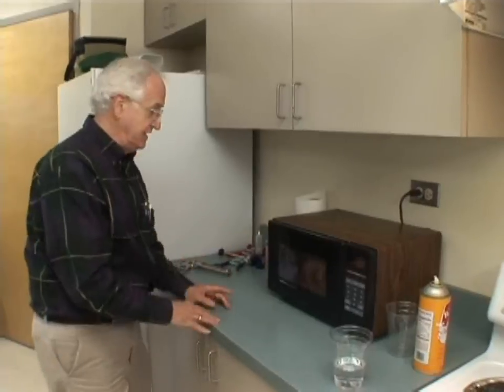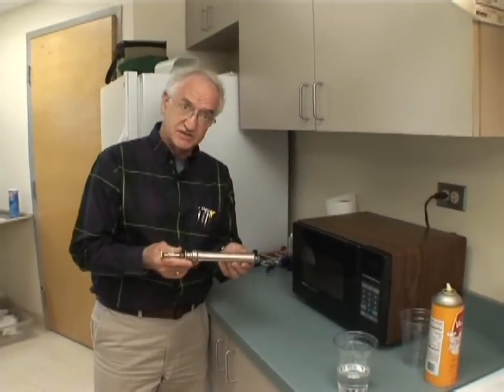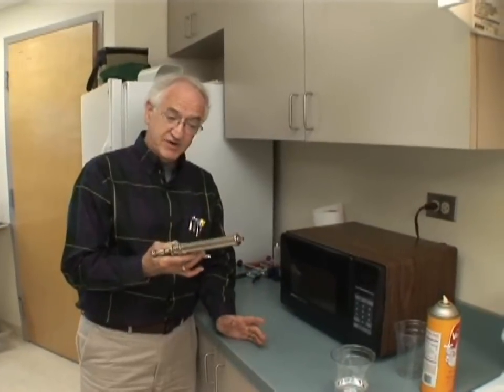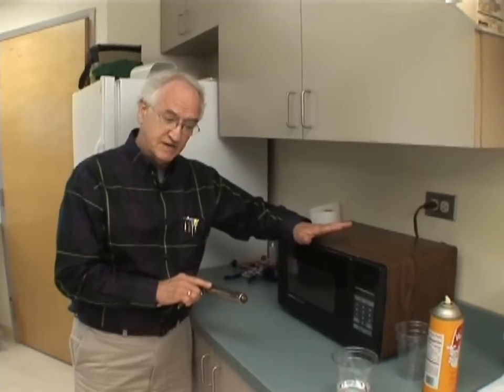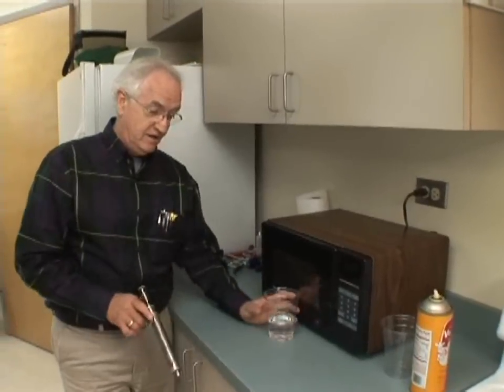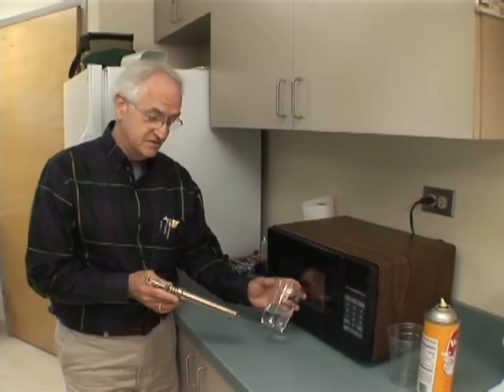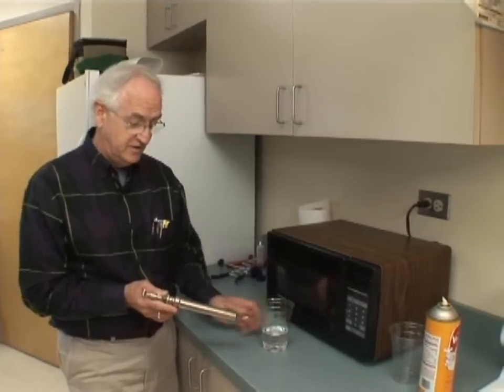While that's cooking, let me talk for a second about how you would clean a metal syringe. You can't wrap enough paper towels around it to put it in a microwave to stop the sparking. But what you can do is use a microwave to come up with some boiling water — just a couple of minutes to heat a glass of water.